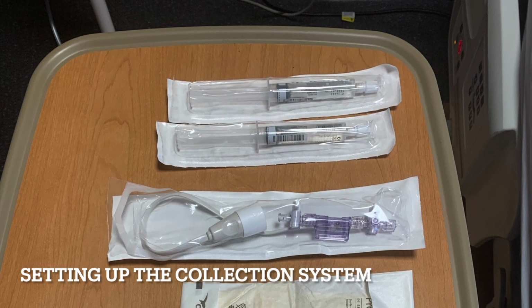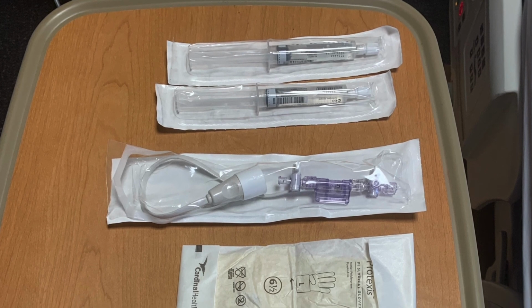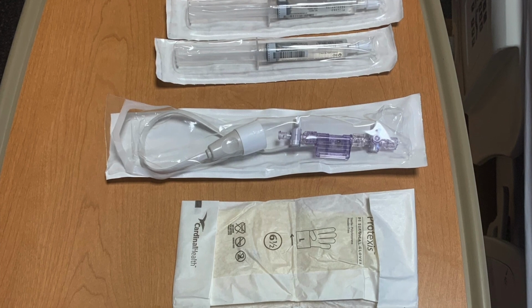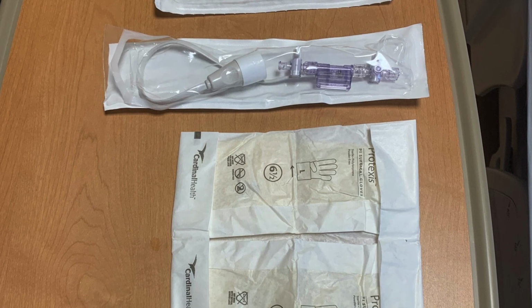Now that you're familiar with the EVD collecting system, let's learn how to appropriately set it up. In addition to the collecting system that will come sterile from the manufacturer, it's important to gather supplies before attempting to set it up. You'll need the flushless type transducer.